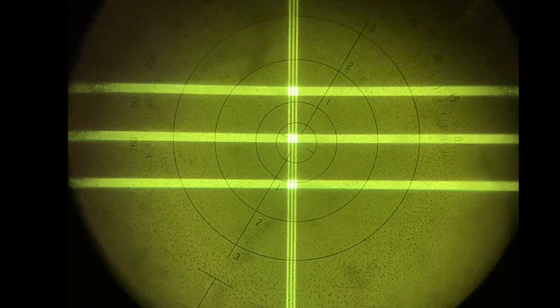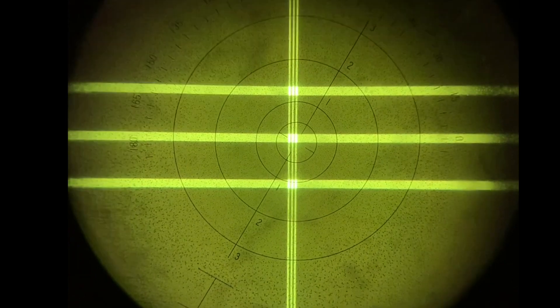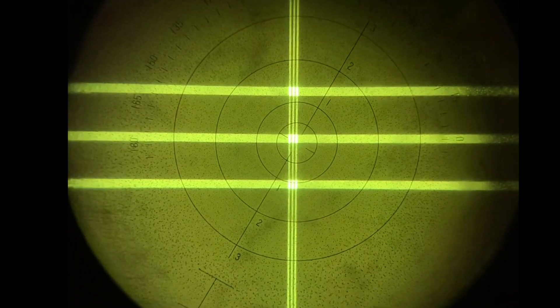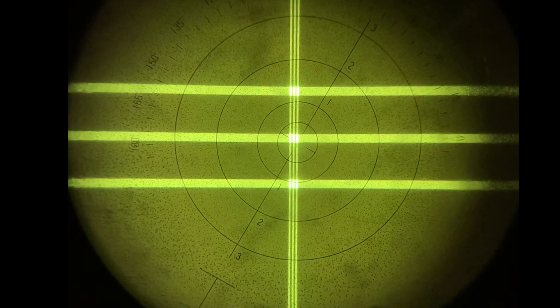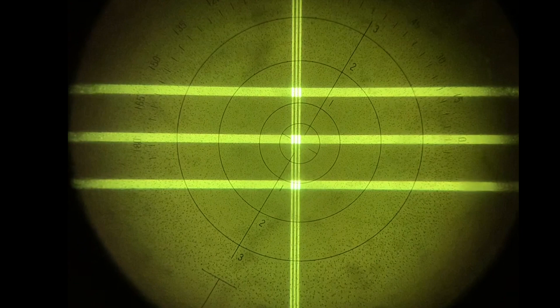This lens is a spherical lens. We can tell a spherical lens because both sets of lines will be in focus at the same time. This indicates a spherical lens with no cylinder correction.